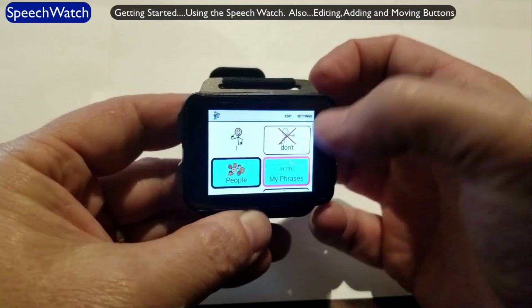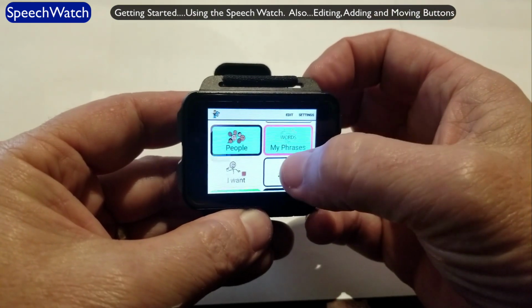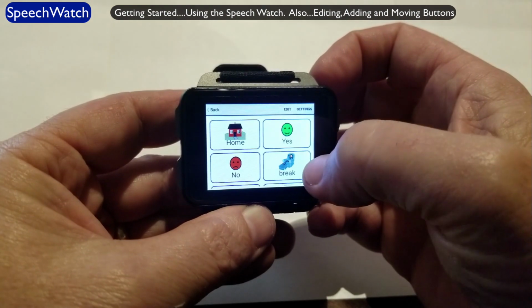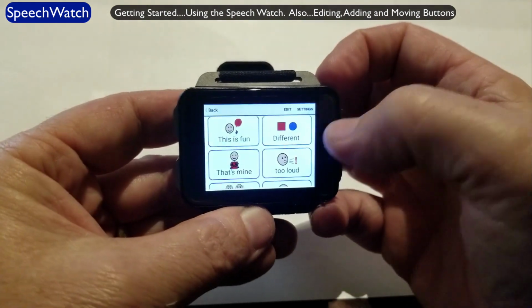And so you can just, again, use symbols for whatever communication you want. You can use your phrases. Again, there's 13 different vocabulary sets set up in here already. Yes, no. This is fun.